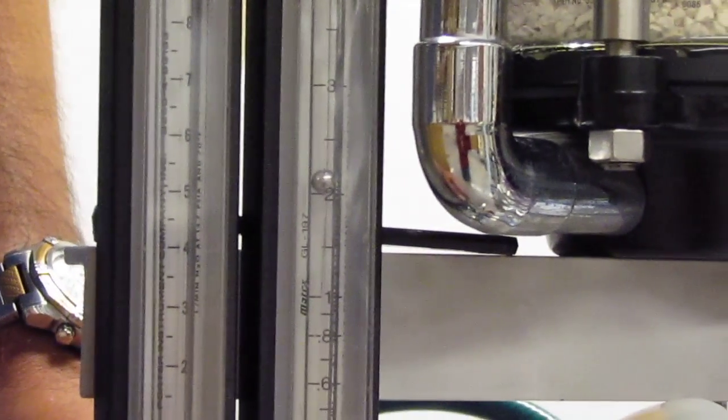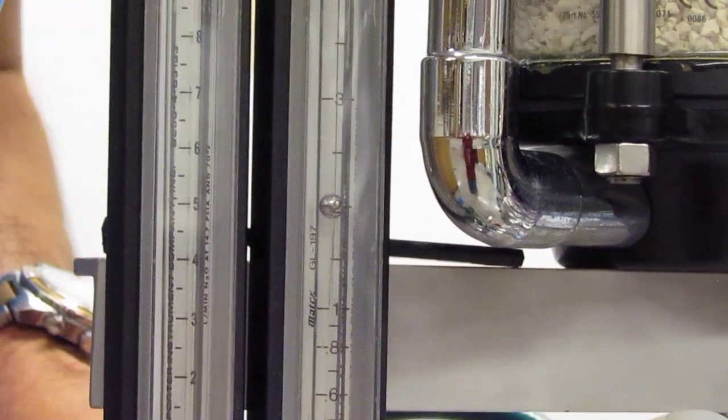This is not two liters and this is not two liters. Center of the ball is two liters, okay?